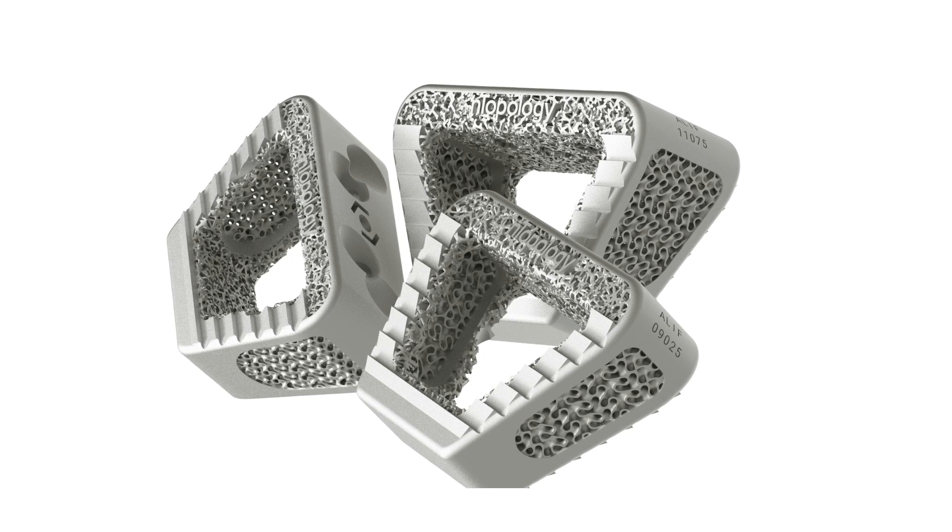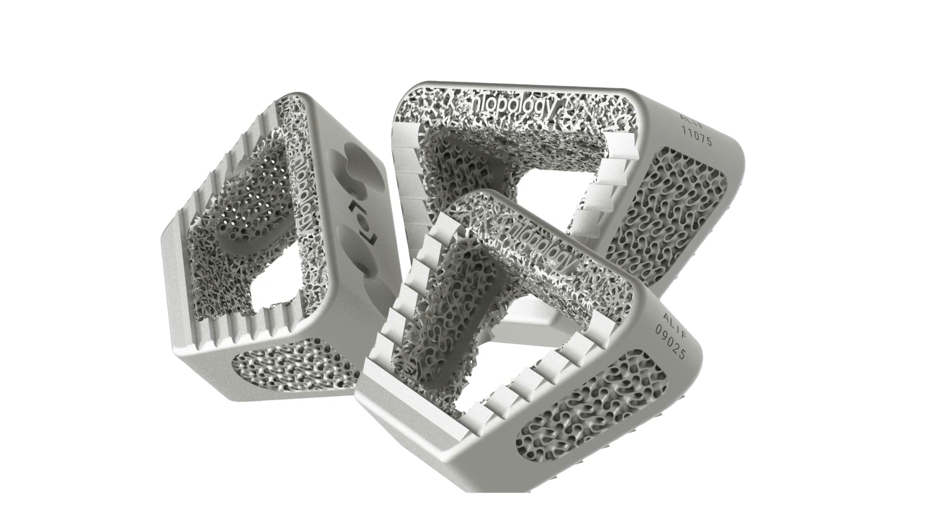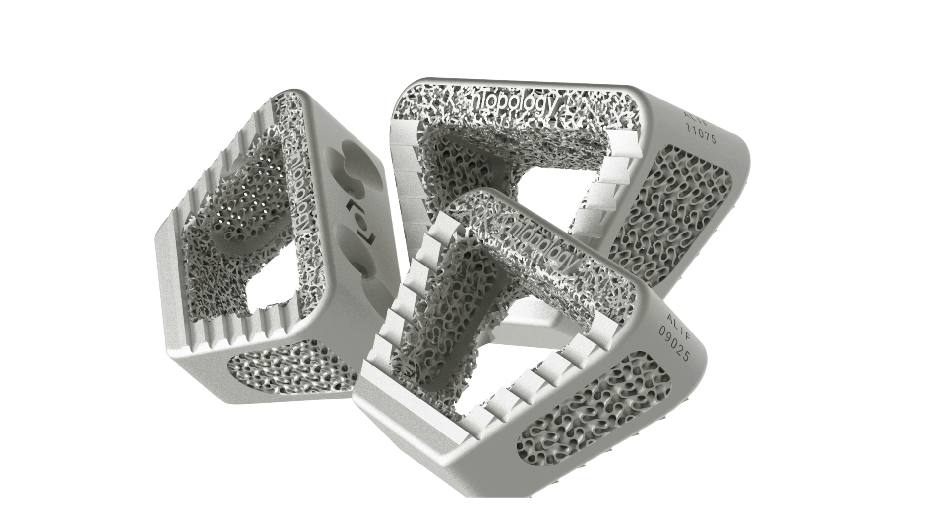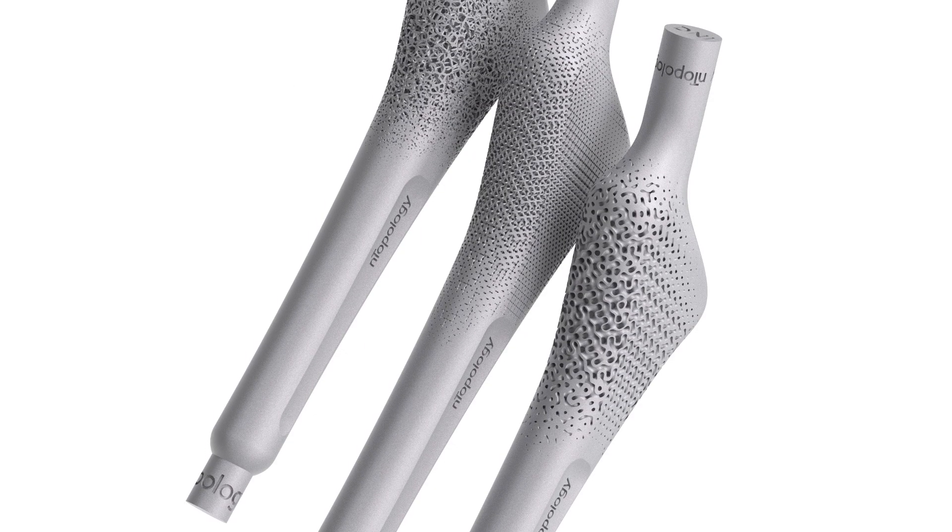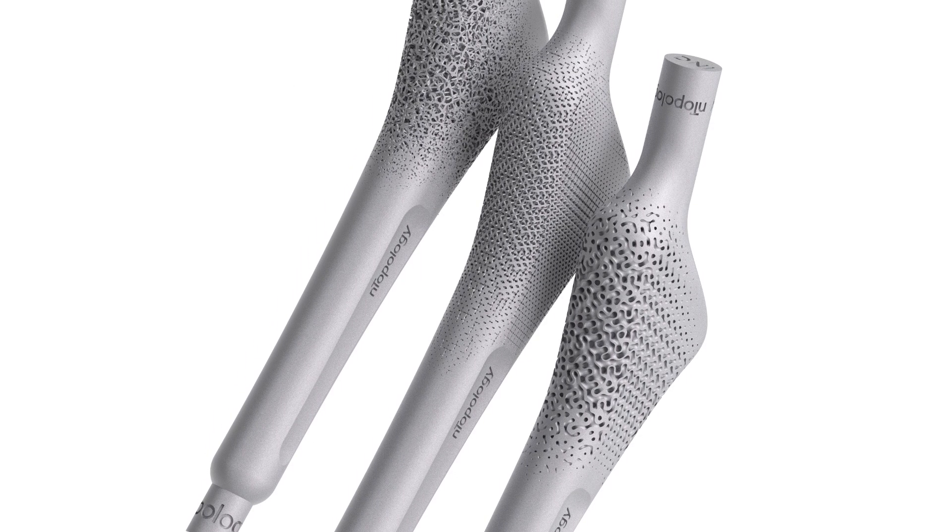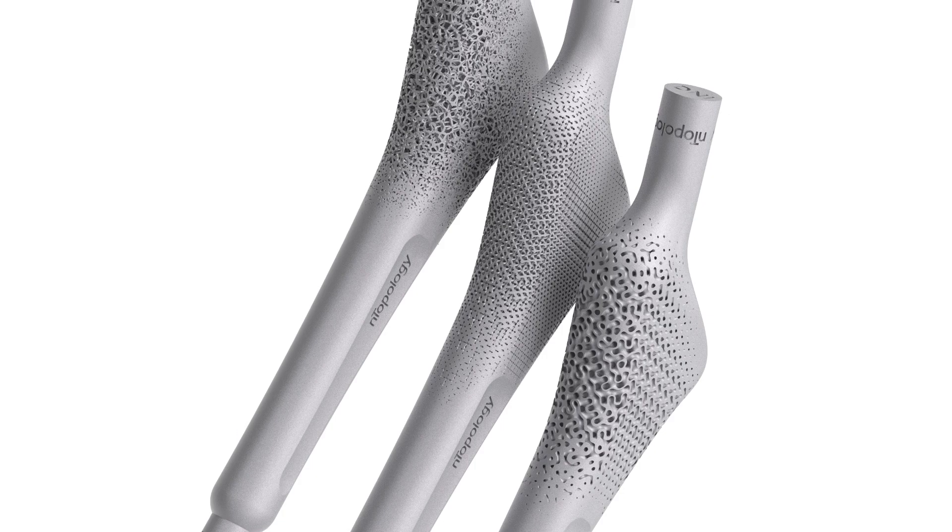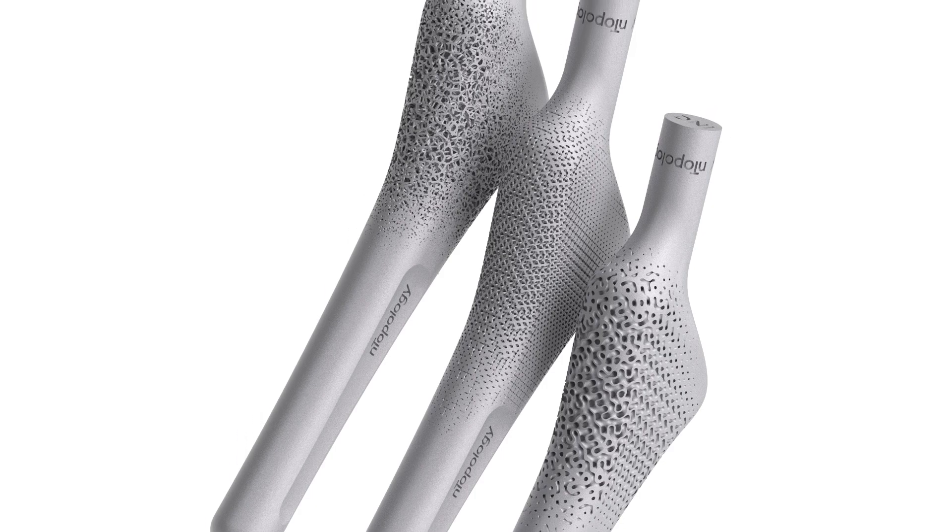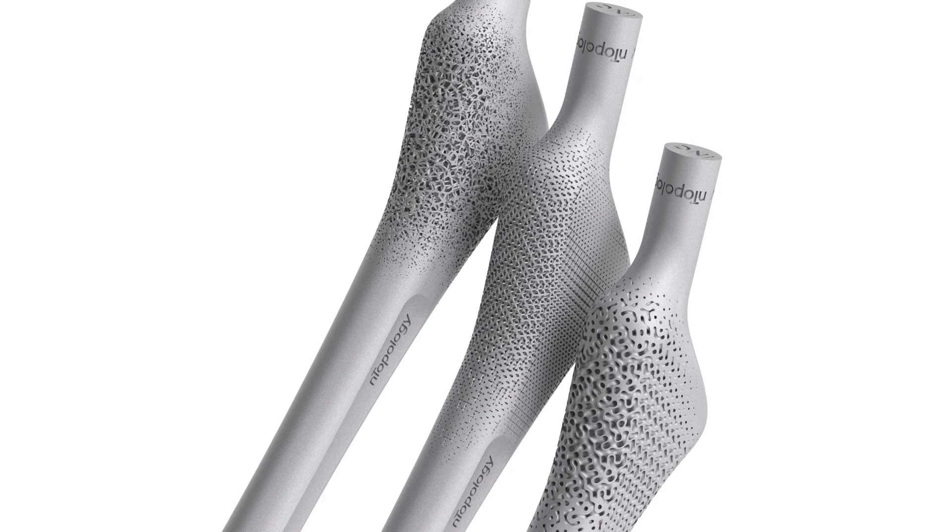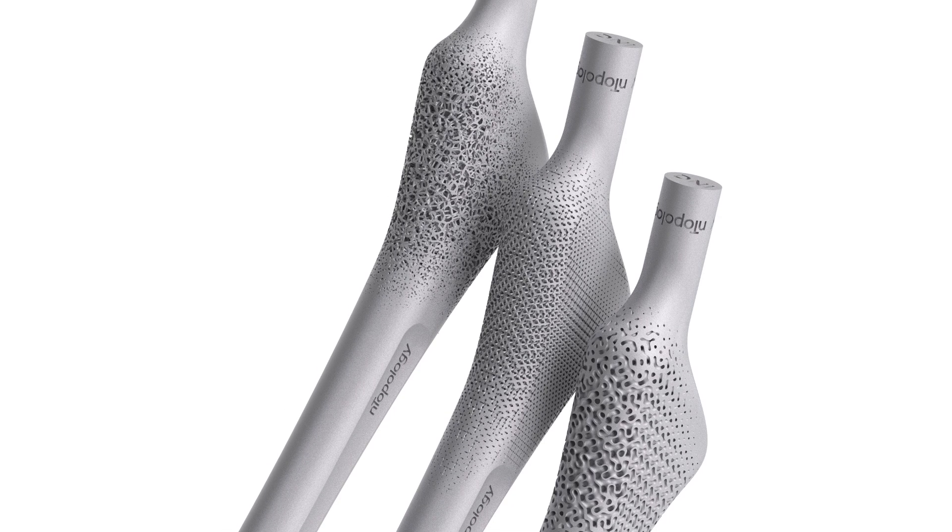Additive manufacturing has enabled medical devices to become significantly more advanced in the last decade. In the case of orthopedic implants, 3D printing the lattice structures directly onto the device has enabled the designer to manipulate critical parameters such as beam thickness, pore size, and lattice density.